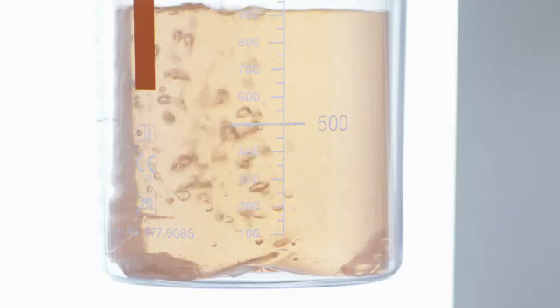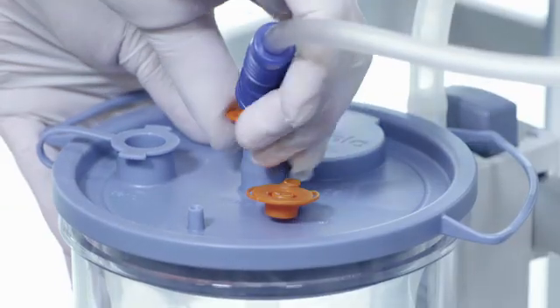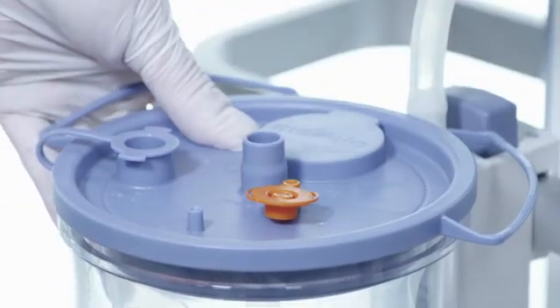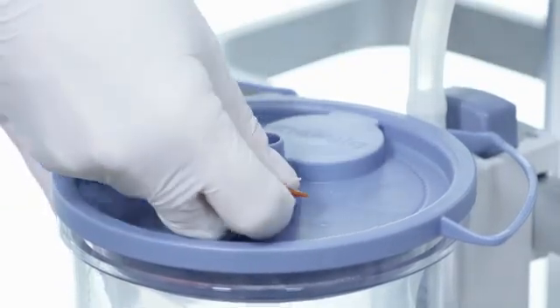When the liner is full, remove the patient tubing and plug the patient port.